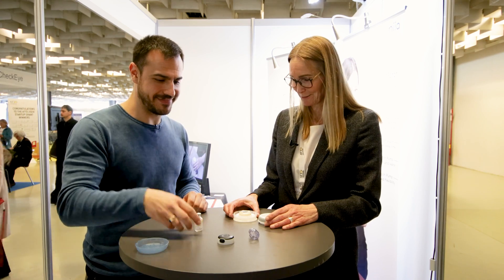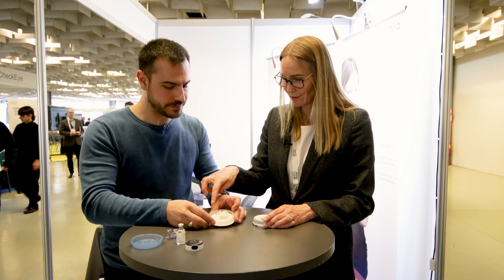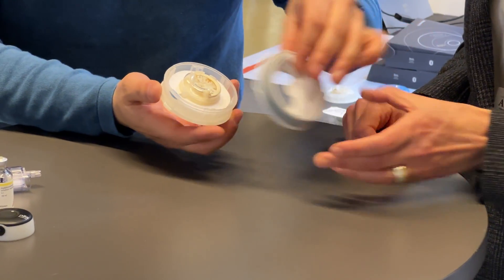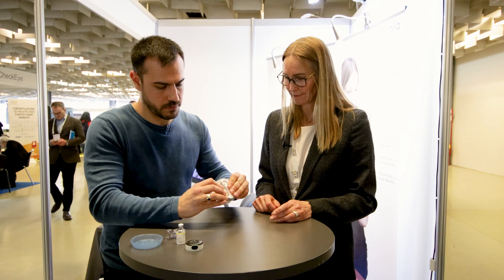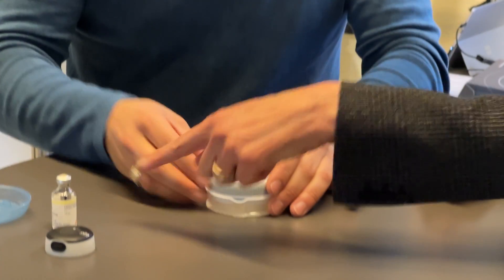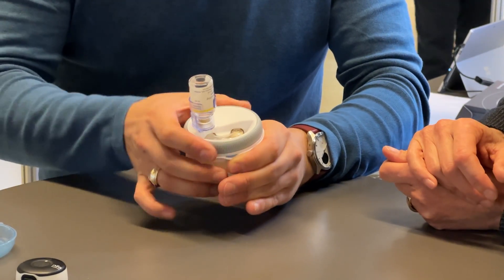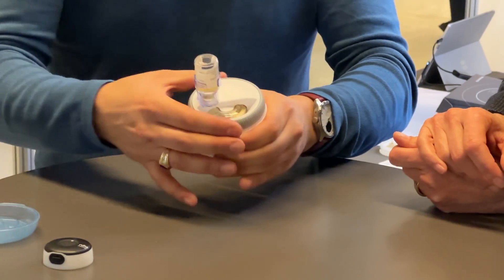So let's do it — walk me through this. We've got the reusable piece and the disposable one. Here you have a blue mark and here you have a blue mark, so you clip those two together. Then you place the vial holder in here — this is also disposable. You press it down and then place your bottle in there. This is like a syringe, so you press air into the bottle and then pull back to fill with insulin. It's comfortable — many people find it difficult with a syringe and also worry about bubbles. Here you can see if you have any bubbles. There is a bubble — you bring it up and pop it out. Now you're completely sure there are no bubbles in your insulin.